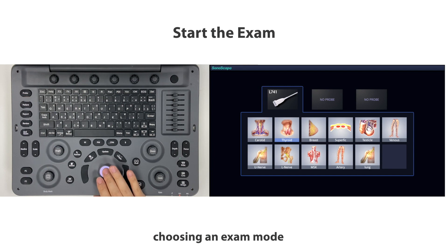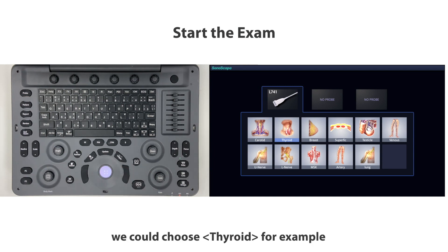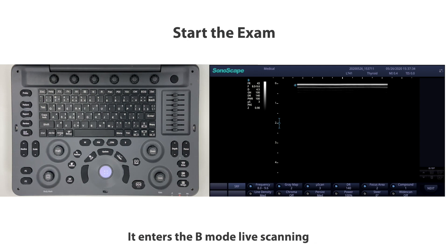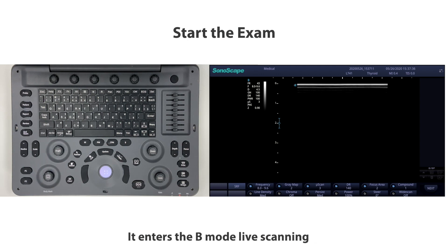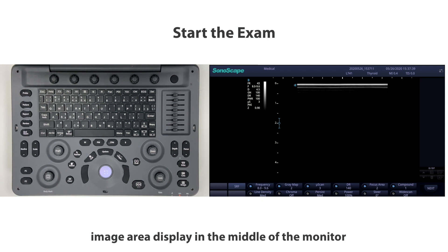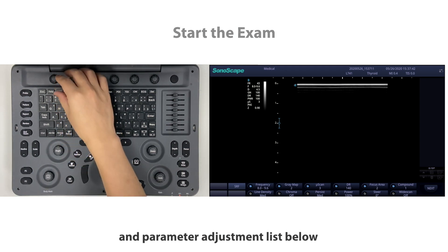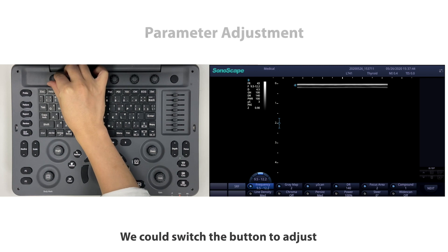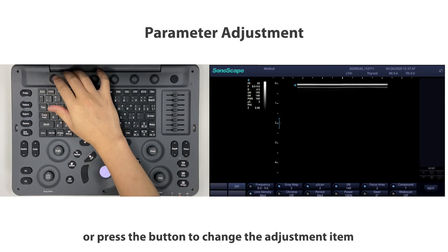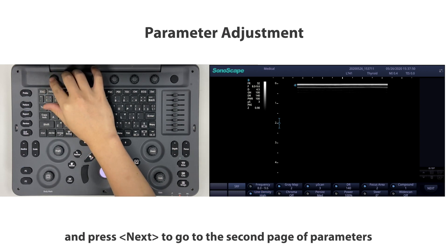After patient information collection, begin the exam by choosing an exam mode. Here is the exam mode display — choose thyroid, for example. It enters B-mode live scanning, with the image area displayed in the middle of the monitor and the parameter adjustment list below. Switch the button to adjust, or press the button to change the adjustment item, and press next to go to the second page of parameters.